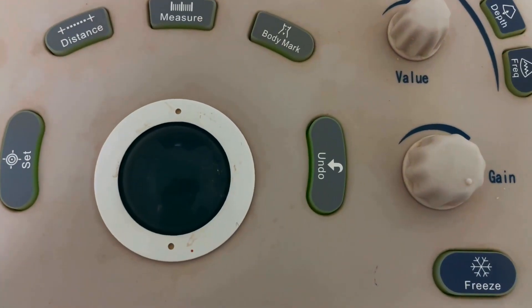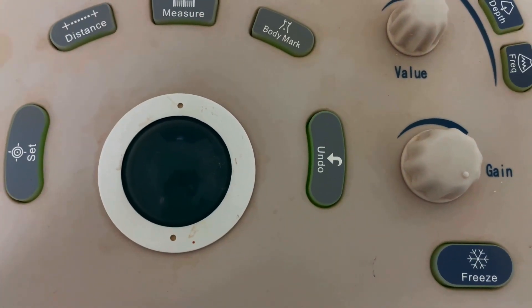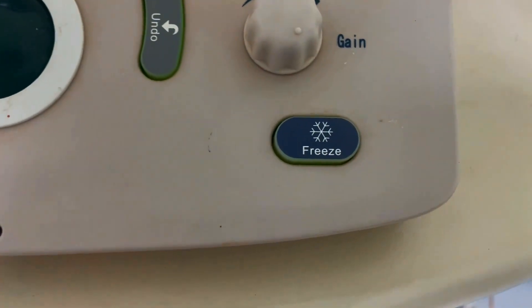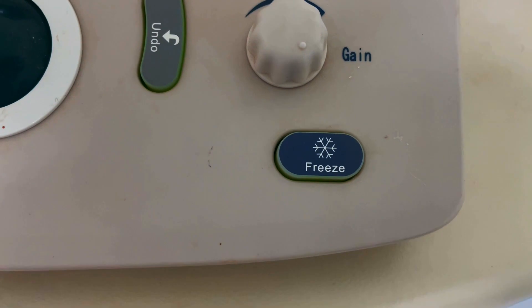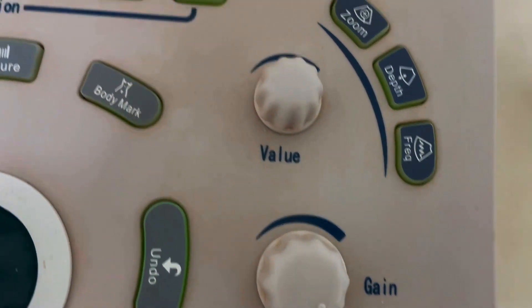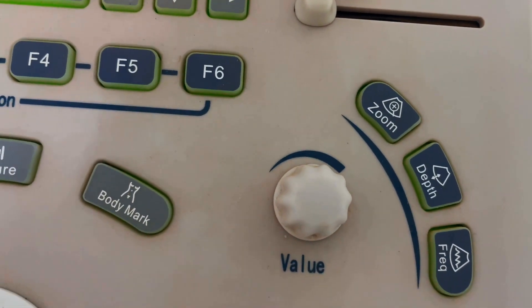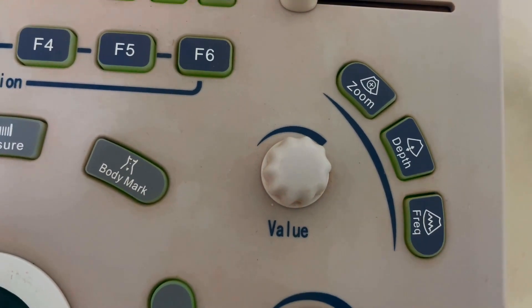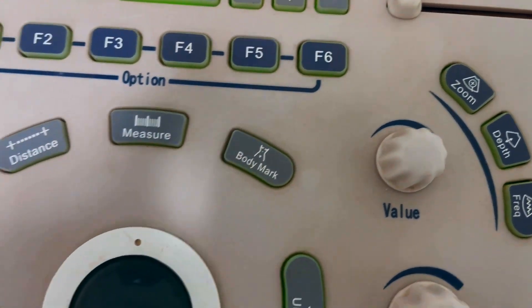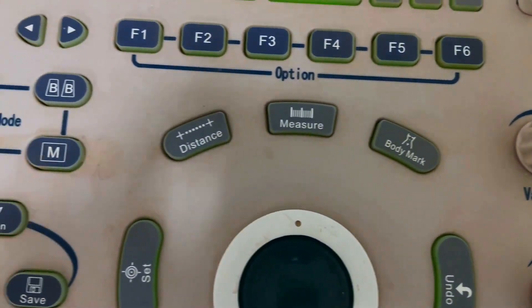This one is the undo button. This one is the freeze button — to freeze and unfreeze the image. This one is the gain button, this one is the value button, and this one is the zoom, depth, and frequency button.